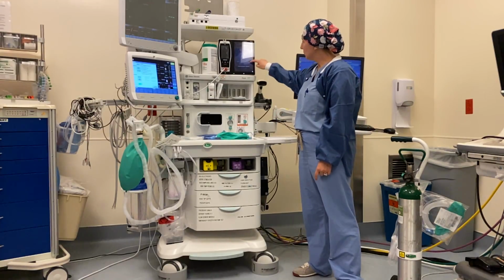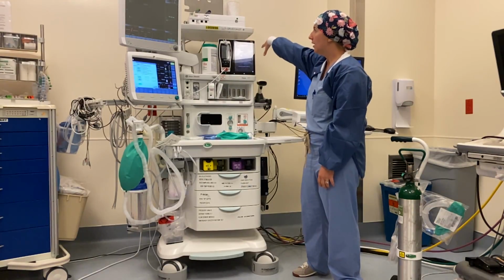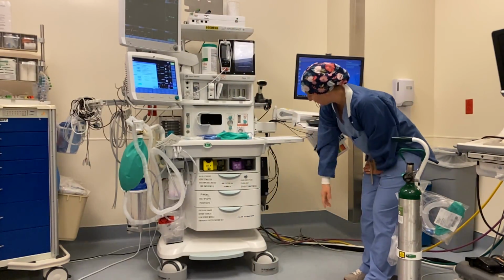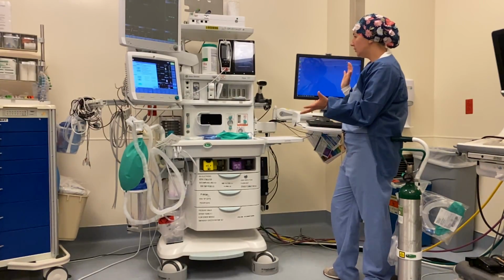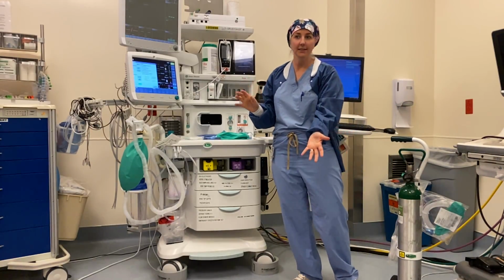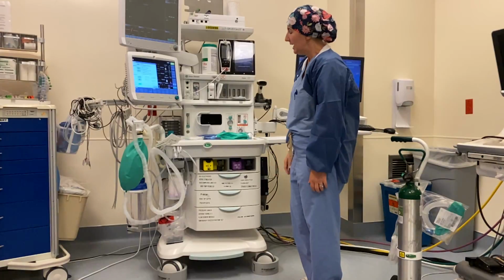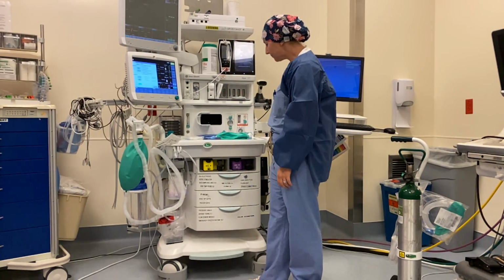The next one is this one. Here it turns on the Masimo, which is your oxygen saturation monitor. Then this one is for your vital sign monitor, and then down here is the computer. Sometimes that tower is located on the top up here. Basically, you just want to turn all of the power buttons on until all of your screens light up, and if one doesn't, find an adjacent power button and push it. You can't ruin or break this machine by hitting a power button. It'll take a few minutes, everything will start beeping and buzzing and humming.